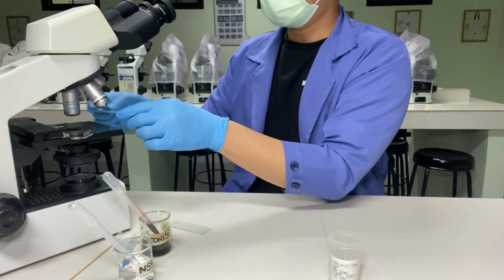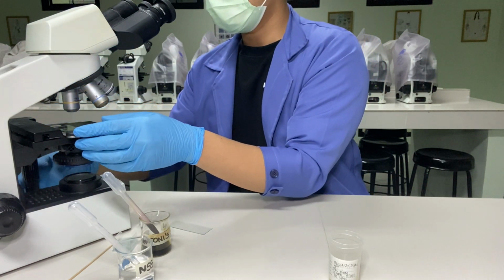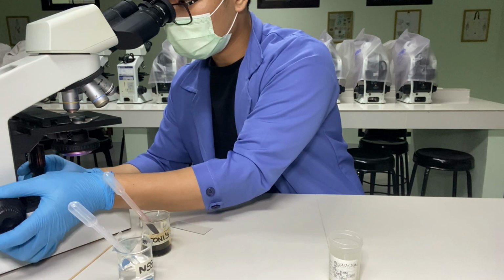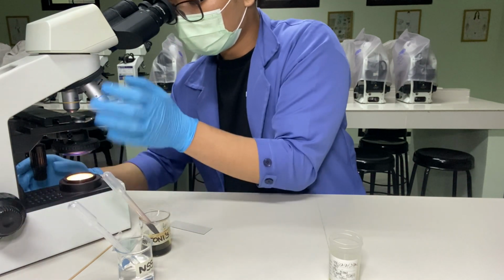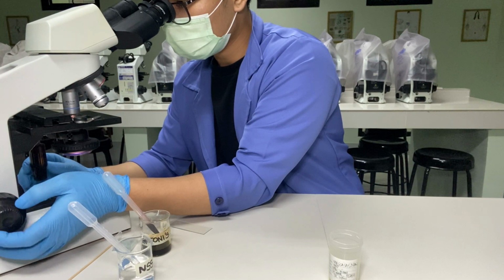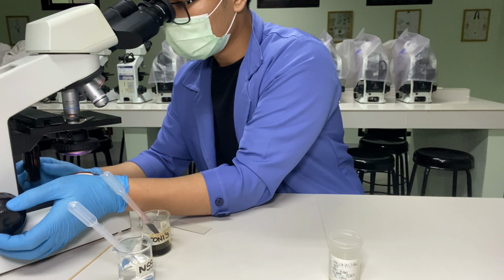Examine the entire preparation systematically and thoroughly under the microscope using the low power objective. Confirmation of parasites can be made by switching to high power objective. For helminths, a positive result is reported as number of eggs with the name of the helminth per cover slip, or in pluses, and no ova seen for negative result.